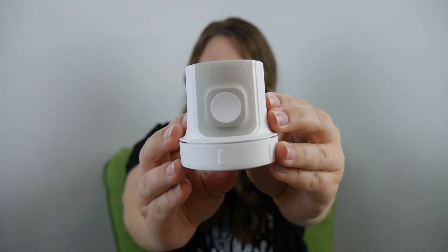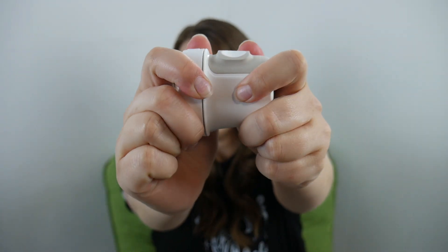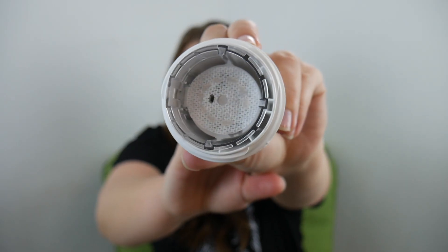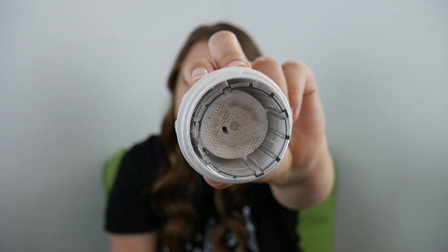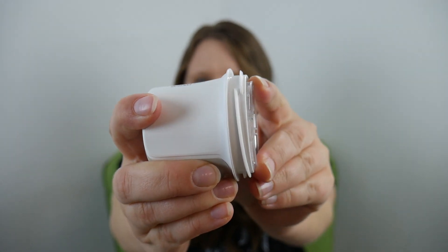Let's go ahead and open it up and try it on. The sensor-transmitter combo all-in-one comes in a box like this. We'll just pull on here — ta-da! So this is what it looks like. The first thing you're going to want to do is just twist the cap off. And you can see in there is the back of the adhesive, and also the needle and sensor that's going to go in. Basically what you do is push the transmitter against your body enough for this clear piece to retract into the device. See how that pushes? So you just push it against yourself.